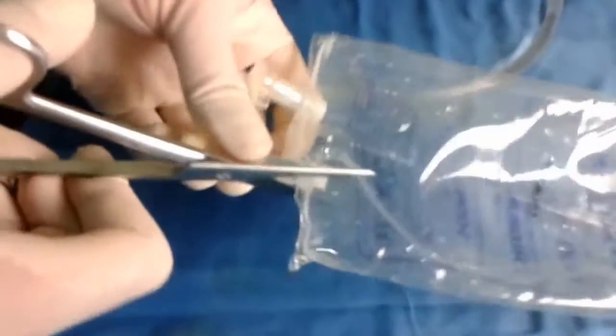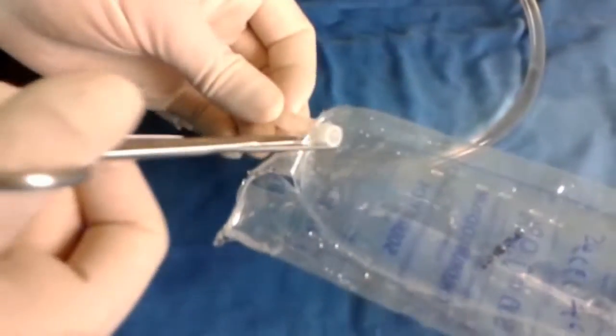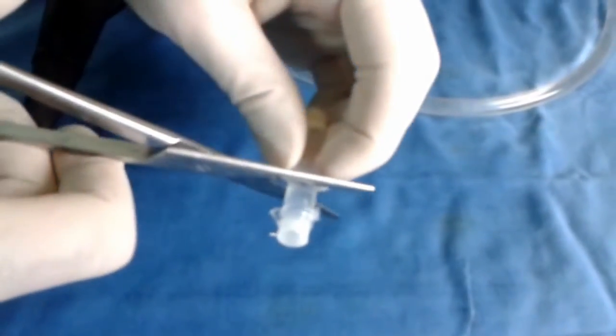The injection port of a serum bag is harvested. The whole length can be used or it can be shortened.